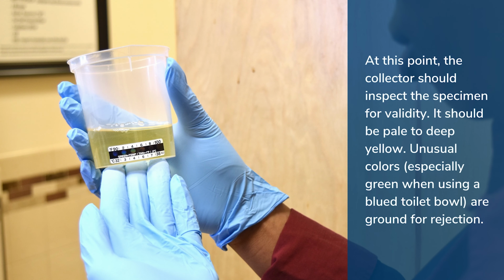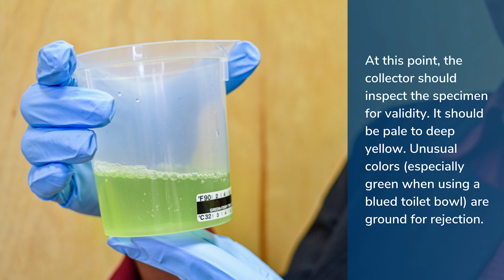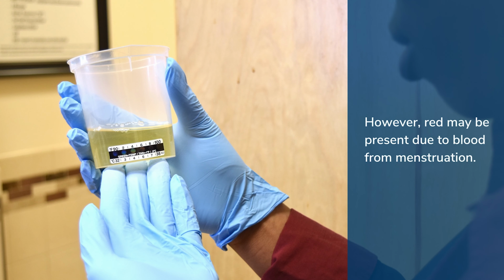At this point, the collector should inspect the specimen for validity. It should be pale to deep yellow. Unusual colors, especially green, as when using a blued toilet bowl, are grounds for rejection. However, red may be present due to blood from menstruation.